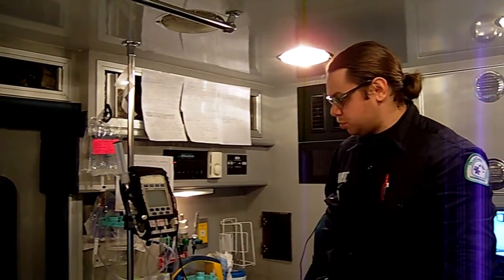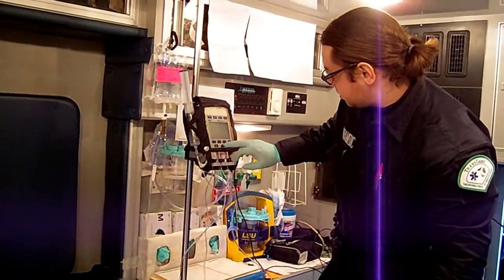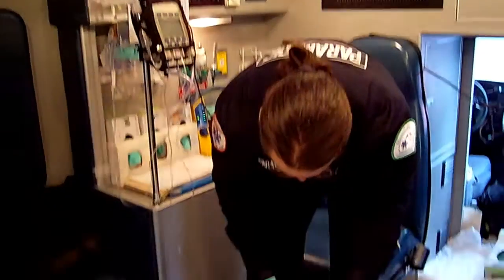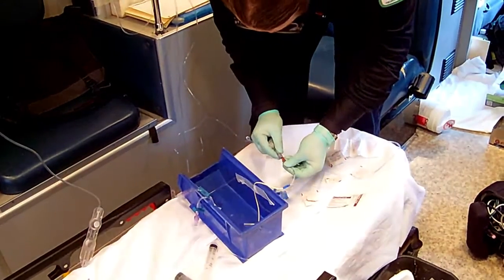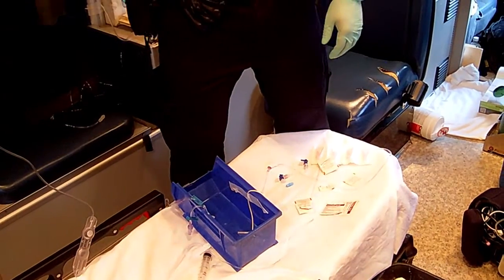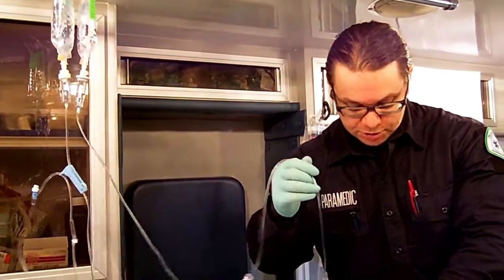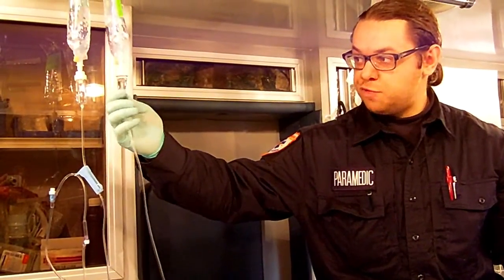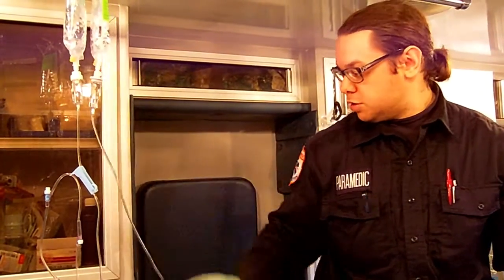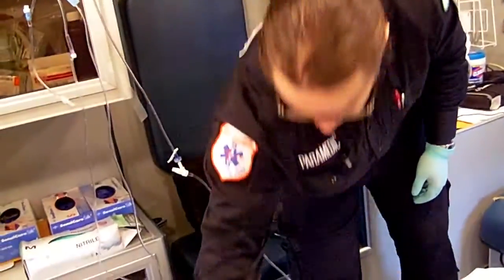Here is another method. Imagine again you've arrived at the facility — the patient is on hospital norepinephrine being infused. They tell you there are no 60 cc syringes available, but you still want to minimize time off the pump. When you're ready to transfer, come to the administration chamber, squeeze it and fill it all the way to the top. You have a piece of tape, and this will go on an IV pole. Have your full set all prepared.